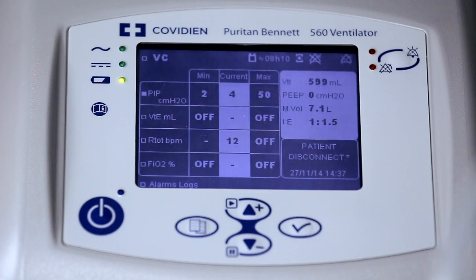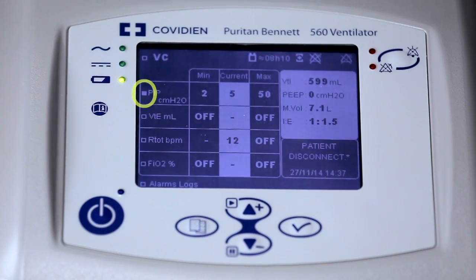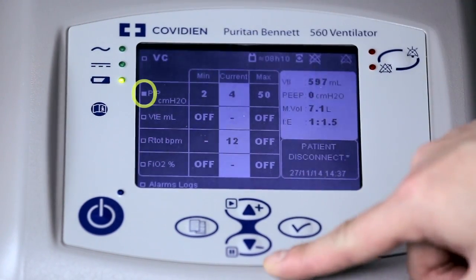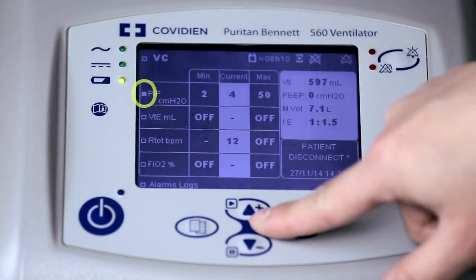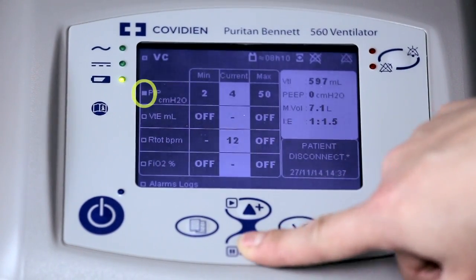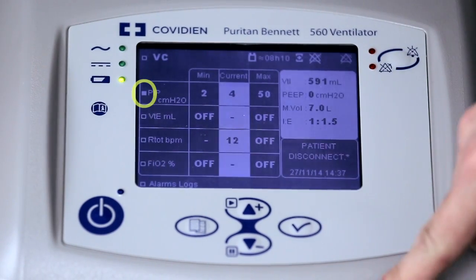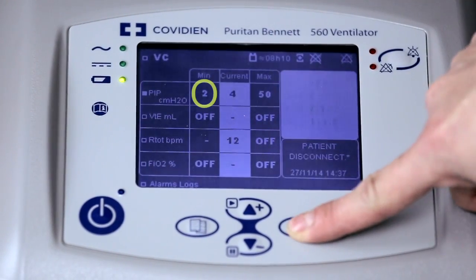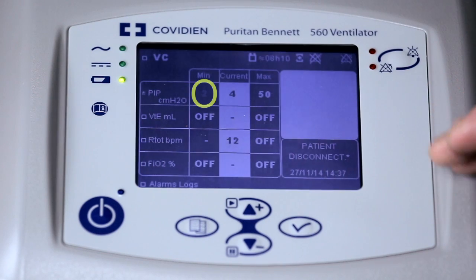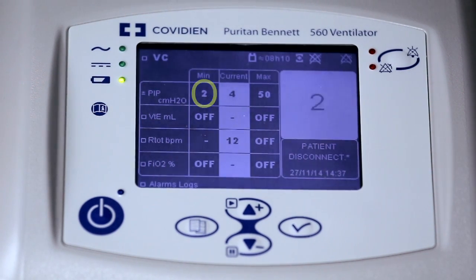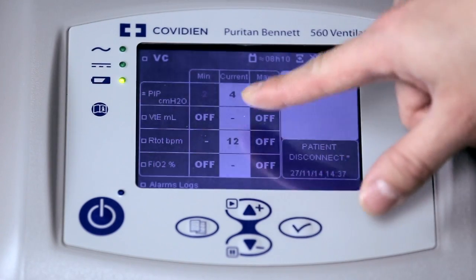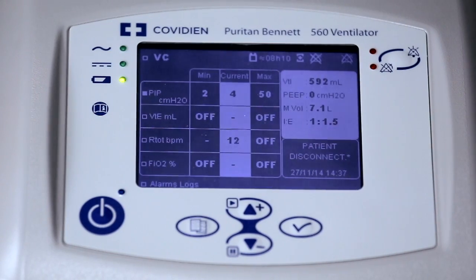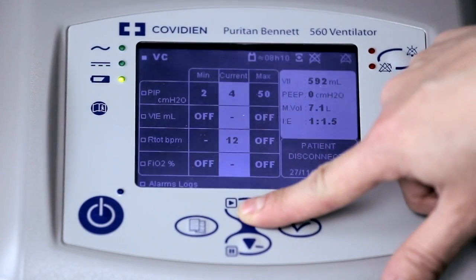Move the white cursor using the up and down arrows to the peak inspiratory pressure and go to your low pressure alarm, which is the minimum column. Select it, and once it's flashing you can adjust the actual alarm value. Increase it so it's higher than your current back pressure in the circuit — we're going to change it to six centimeters of water.